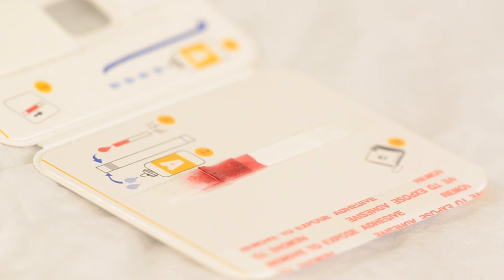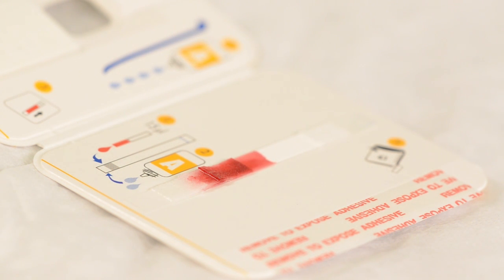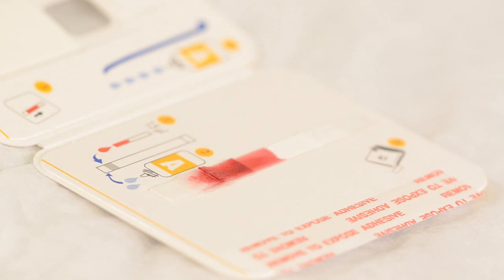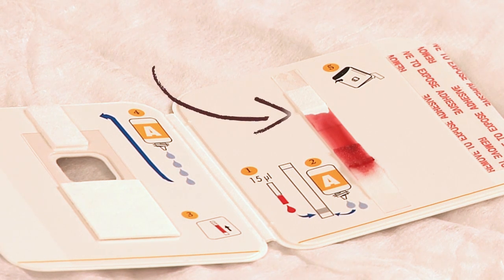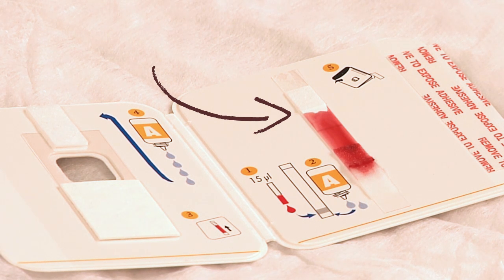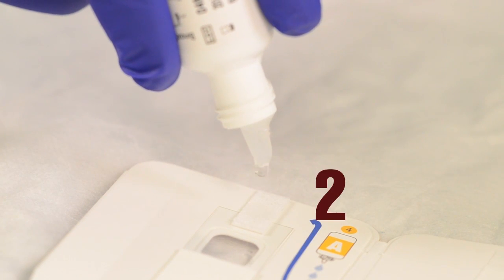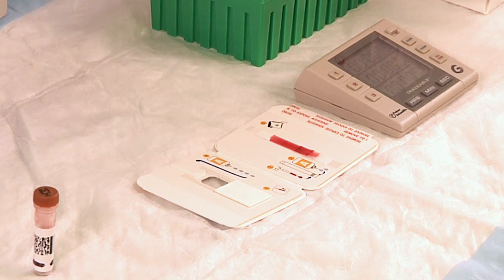Next, allow the blood specimen to run the full length of the test strip. Do not allow the blood to run into or under the absorbent pad at the top of the strip, as doing so will hinder optimal washing of the test strip. Just before the blood specimen reaches the base of the white absorbent pad at the top of the strip, slowly add four free-falling drops of reagent A to the wash pad on the top left-hand side of the test device, allowing each drop to absorb before adding the next. Note that the third and fourth drops may not absorb into the pad.